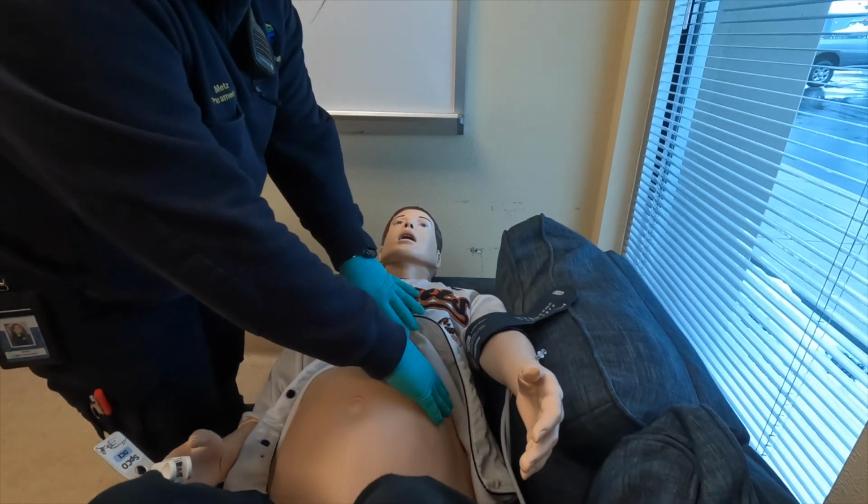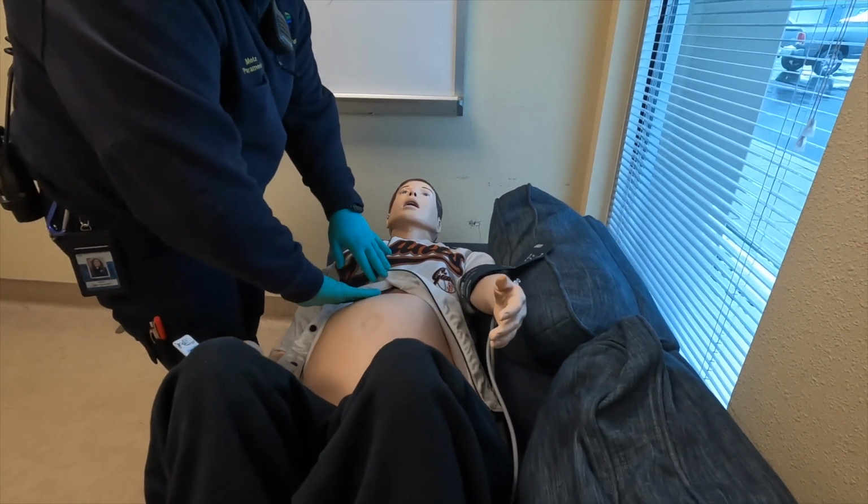Remember, SimMom may have a wide variety of pregnancy-related problems, ranging from early to late trimester bleeding, from normal to complicated deliveries, or even a wide variety of other medical issues. Please assess all patients thoroughly and treat all life threats aggressively.